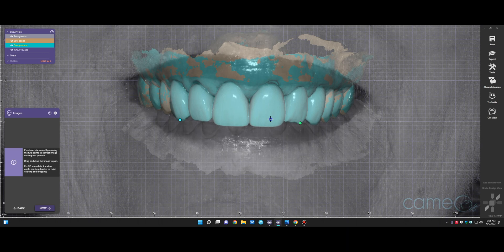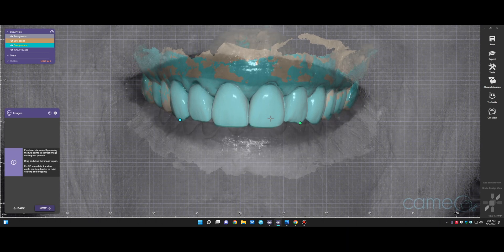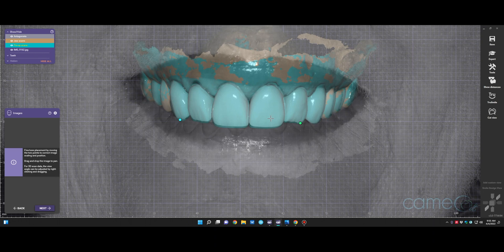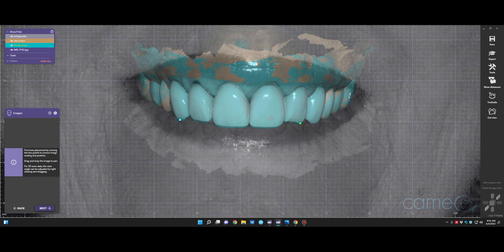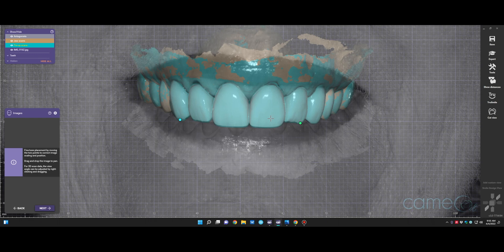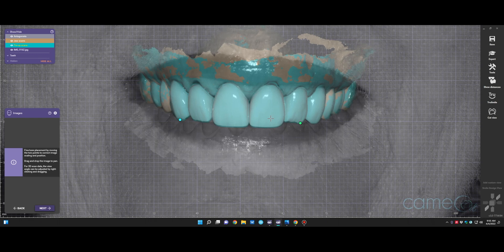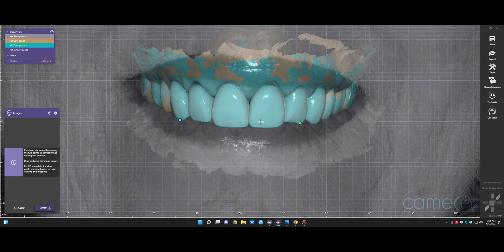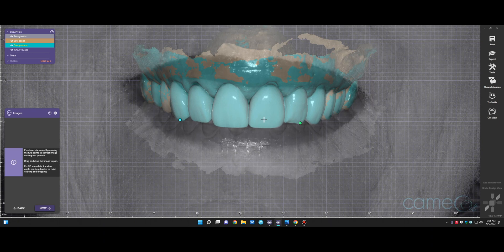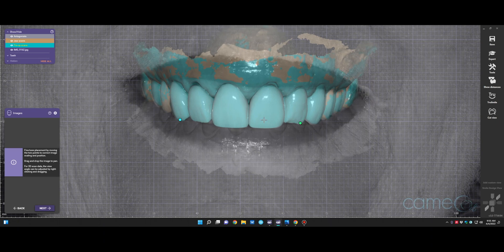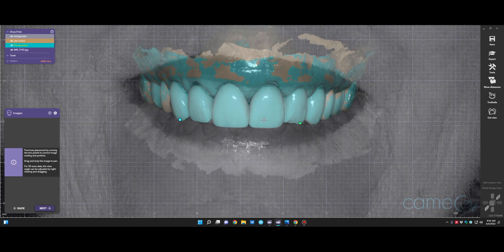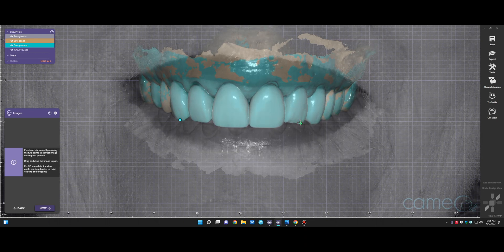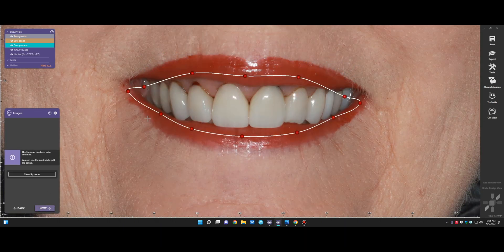And now you can manipulate the 3D and 2D images until they're aligned. I believe it's a right click, which will rotate the 3D image behind the 2D image, and a left click will just move it without rotation. And if you were to click on the two points of reference or two dots with the left click, you can resize and manipulate the 2D image as well. Once you feel like you've aligned it well, then you'll click on next. So you keep moving it until you feel like you're as close as you can get.